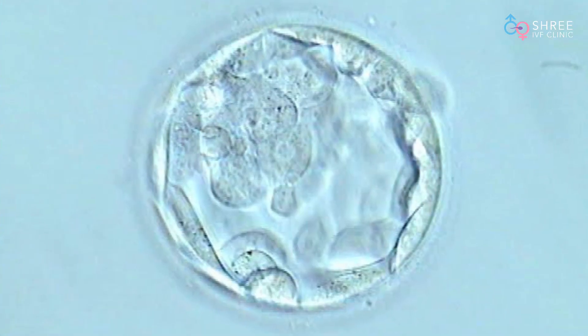Here I am presenting a simple pictogram of how a good day 5 embryo would look. We will run through some things which as a patient, a fertility practitioner, an embryologist, or a biologist you should know when it comes to counseling the patient. This video will help you have a basic understanding of how morphological grading is done for the embryo — morphology meaning how we look at and grade the embryo.